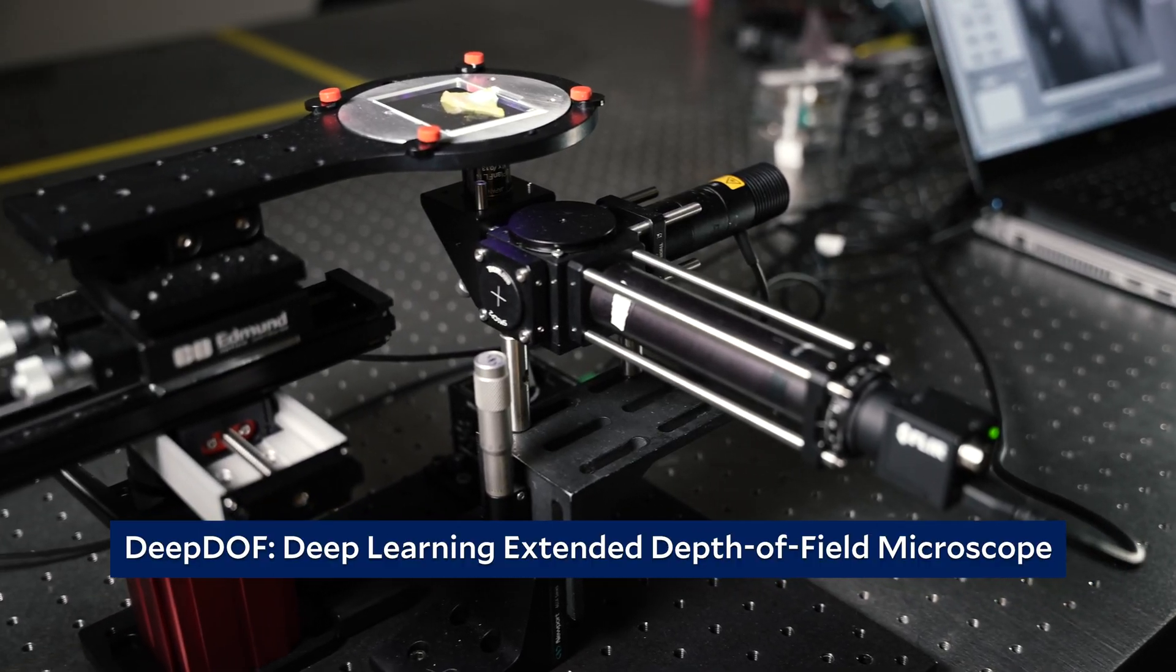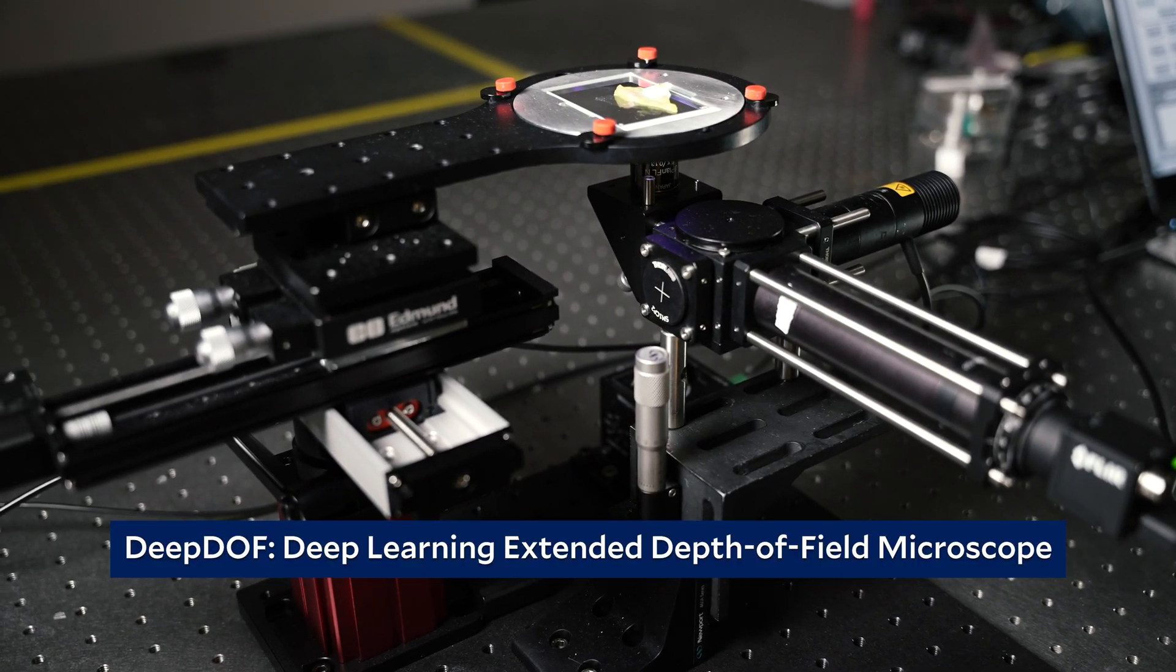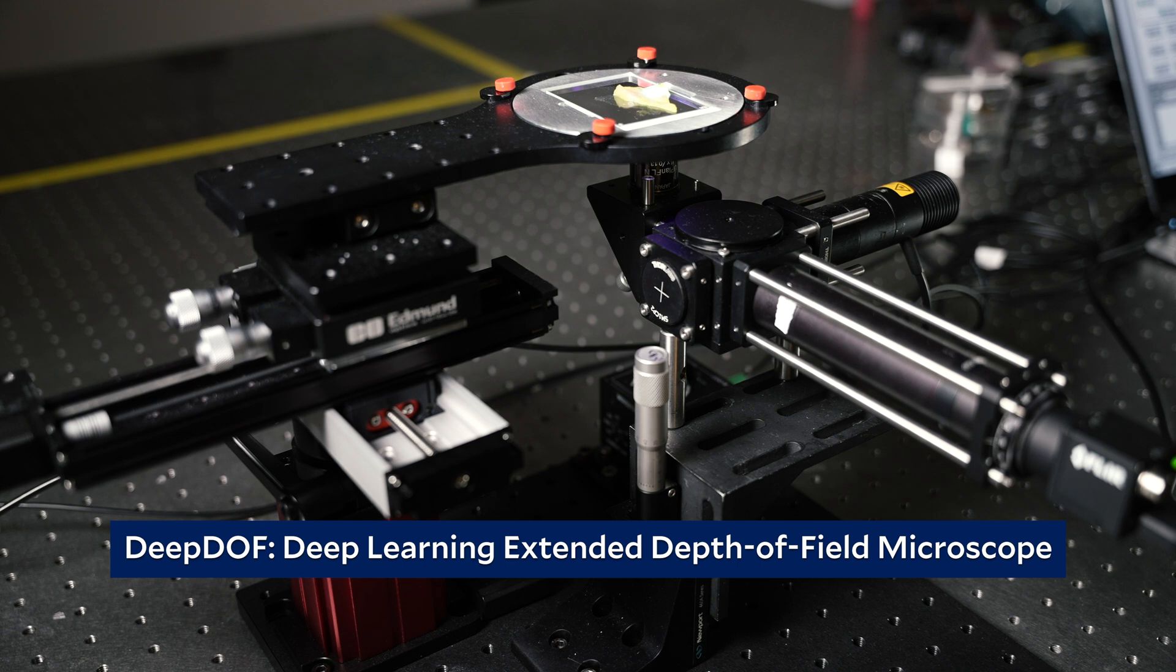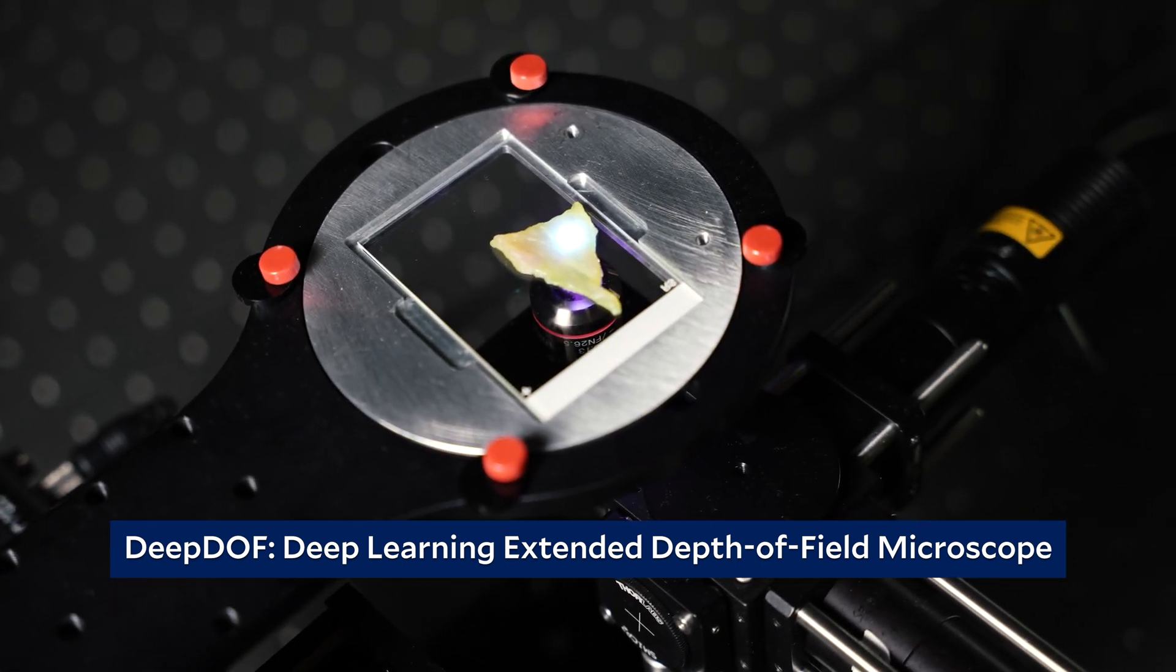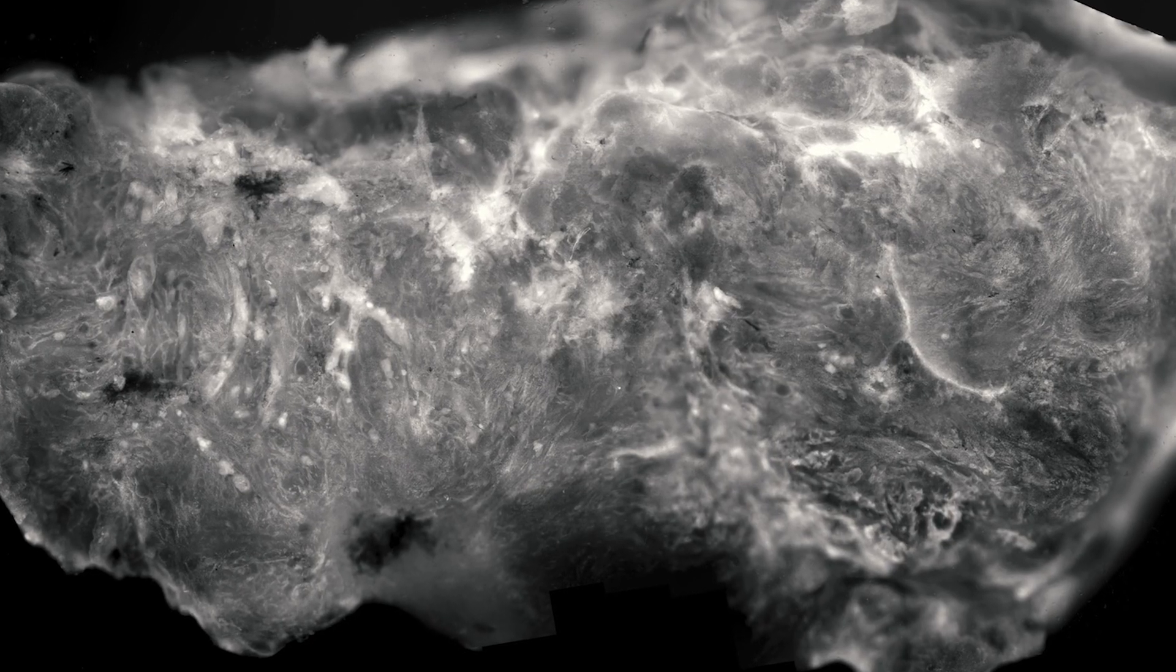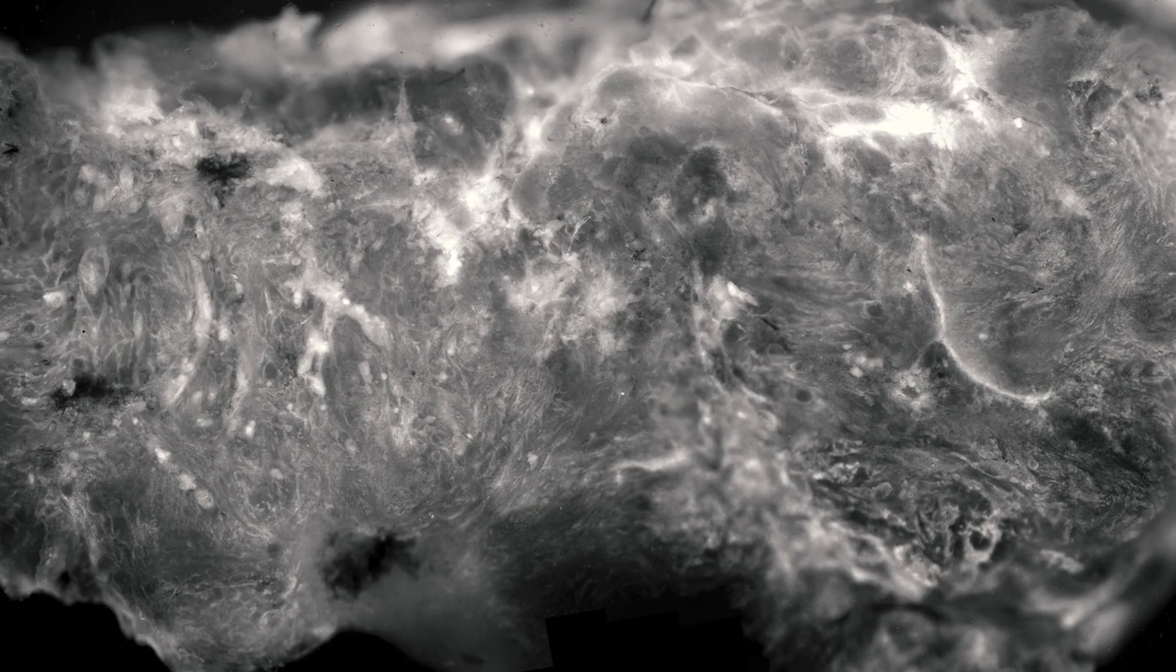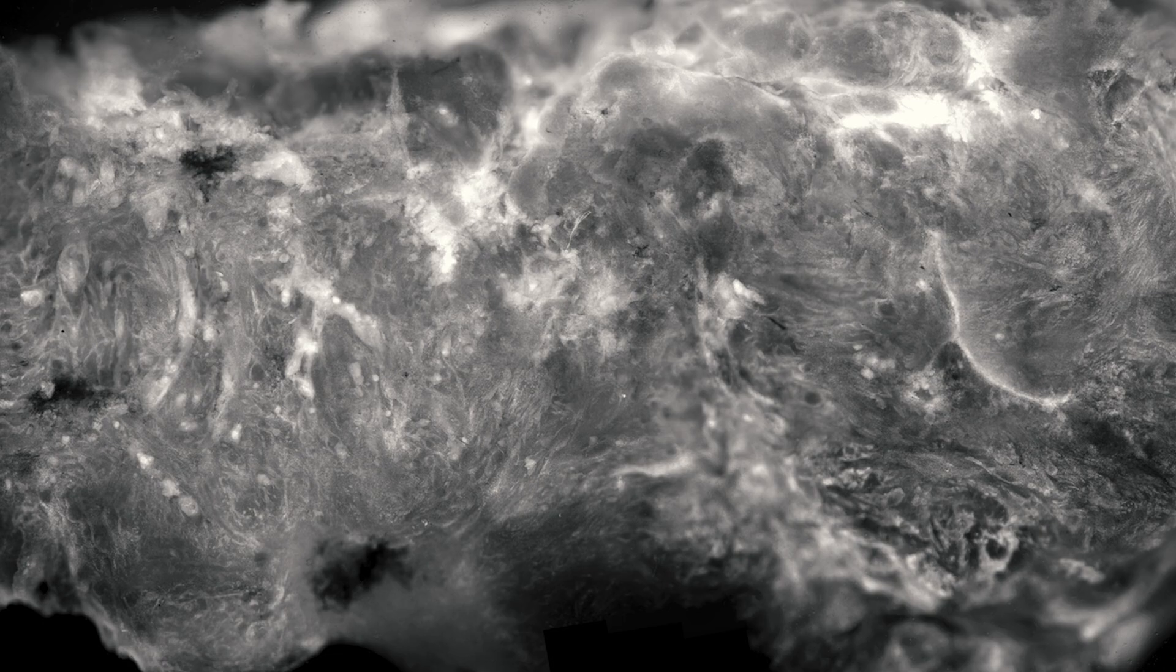But DeepDOF is the first microscope that's designed with the post-processing algorithm in mind. So it has this special optical element, the phase mask, and a post-processing algorithm as a unit. And both of them are jointly trained using deep learning.